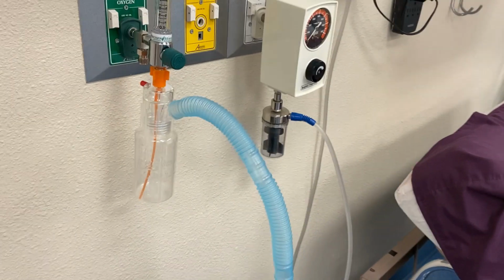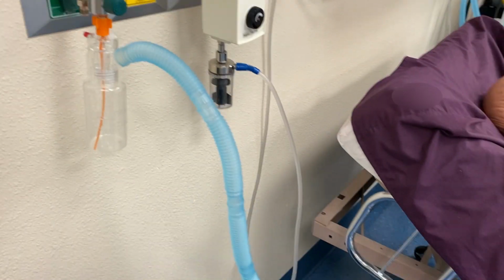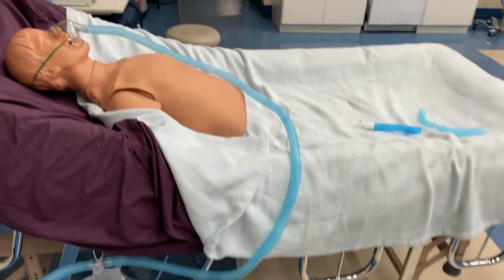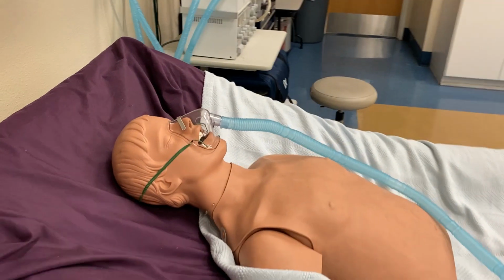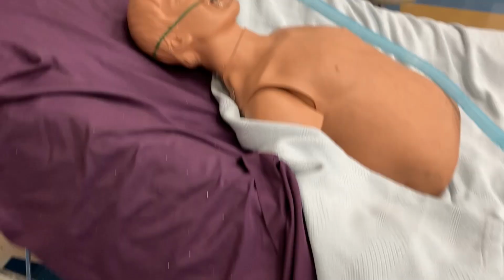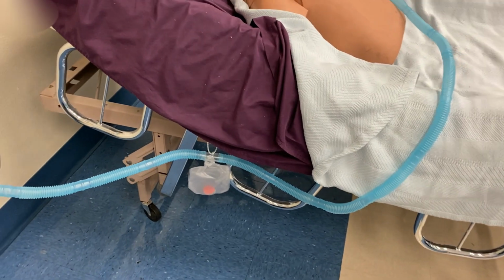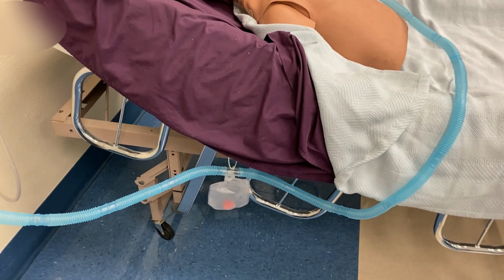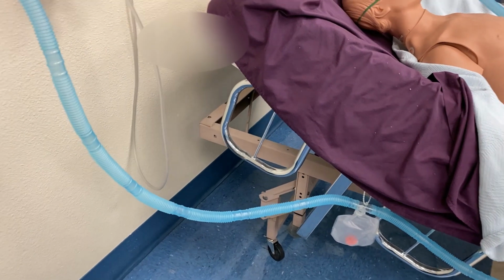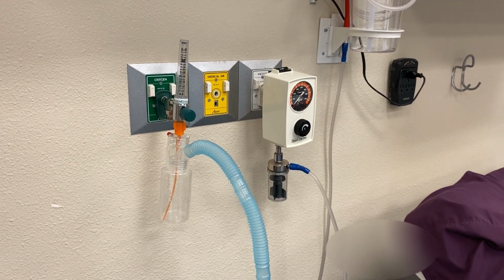Now, very much like our bland aerosol setup, we're going to set the flow. We're going to get the flow into the tubing. We're going to have a drain bag and route that all the way over to the patient. Now, in the case of a continuous aerosol of medication, the drain bag is less important because, again, the medication is usually going to be delivered just over an hour or so. Most likely not enough time to have a lot of rainout being generated like you would with a bland aerosol nebulizer, which has a lot of aerosol output.